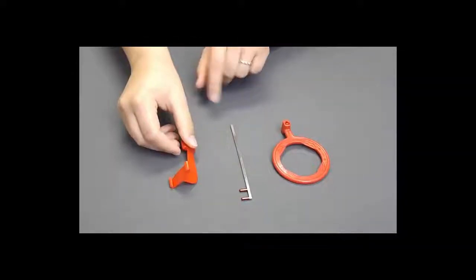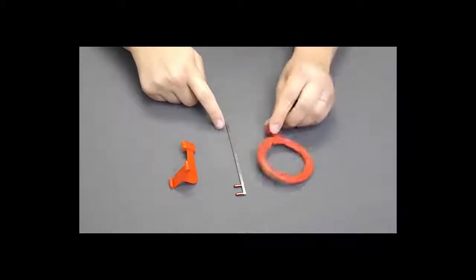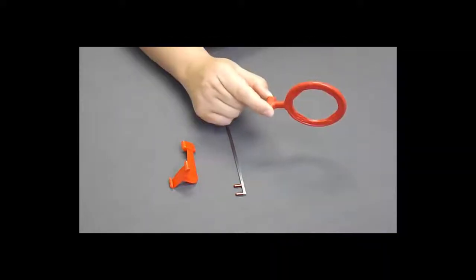The parts of the bite wing instrument are a bite wing bite block, a straight bar, and a ring that is symmetrical when you hold it from its base.